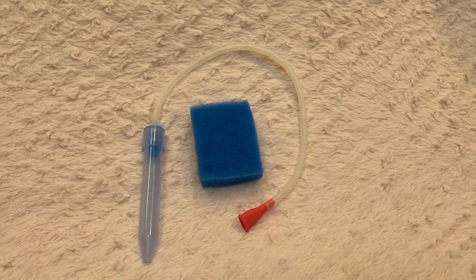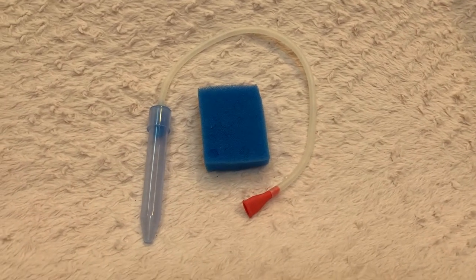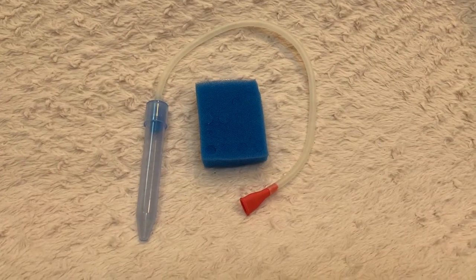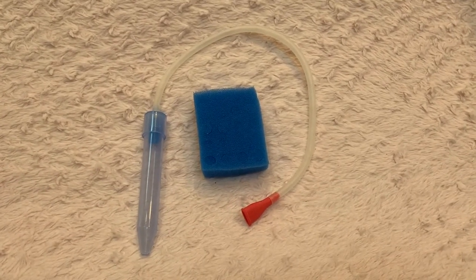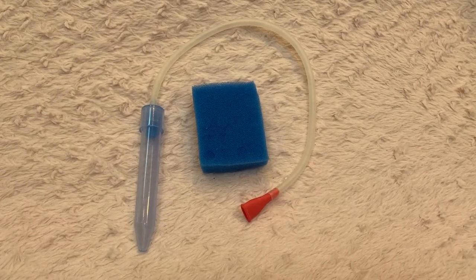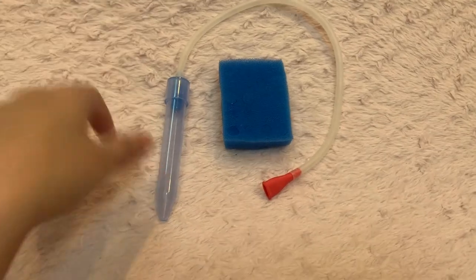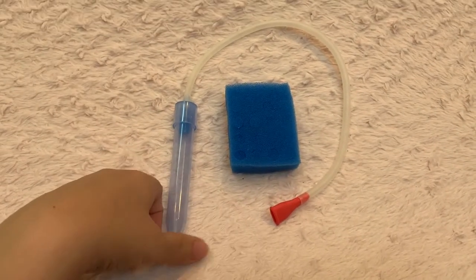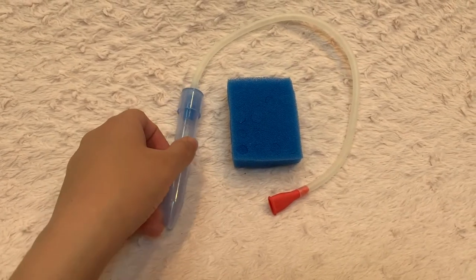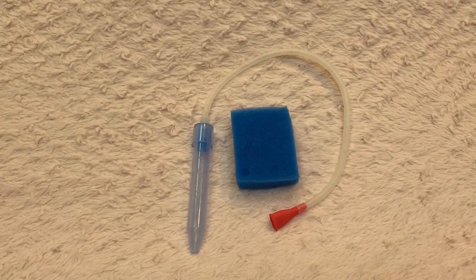You can do it yourself — I had to a few times and it was really difficult. Also, it is on the pricier side considering what it is, just a piece of plastic, but if you need it it's worth the price.